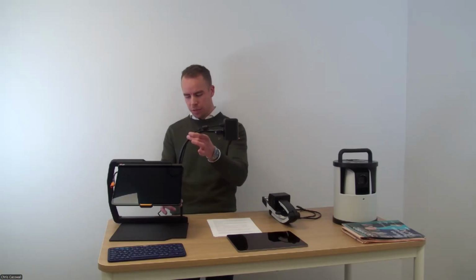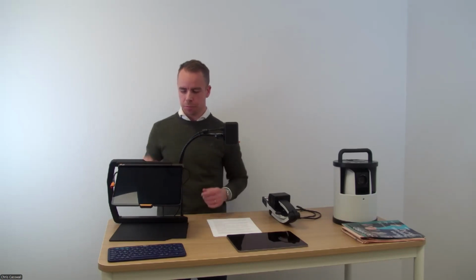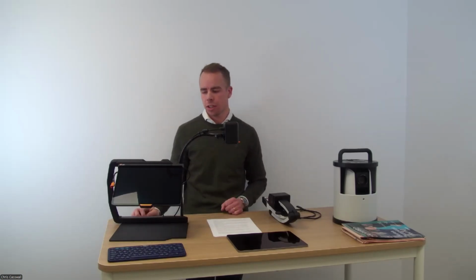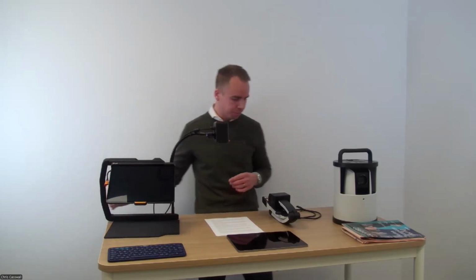On the back of the device, there's a hole. That's where I plug in the external camera. That's what I'm doing here right now. At the top of the product, there are two USB ports available. Actually, there's three USB ports available, one for charging and two available for anything else. In this case, I'm using one for the camera, and the second one is available for a flash drive or a keyboard or something like that. We'll come back to that in a little bit.